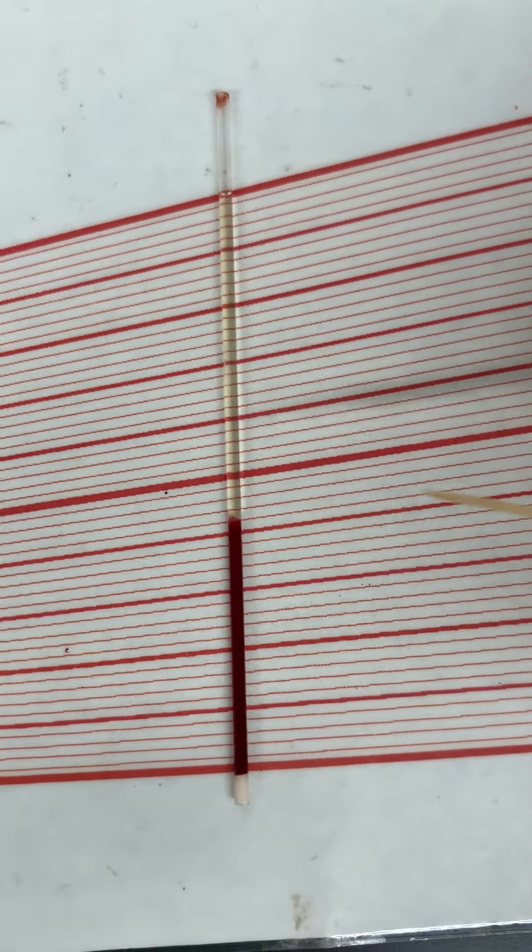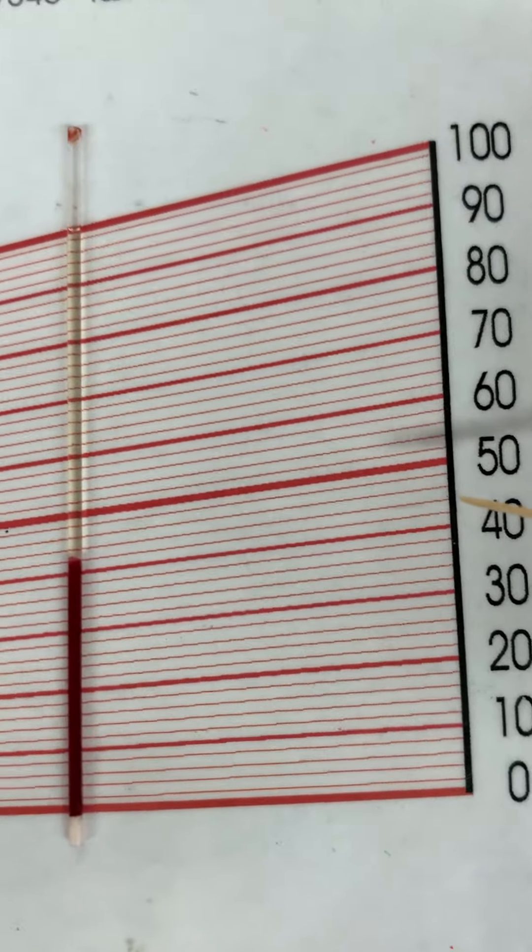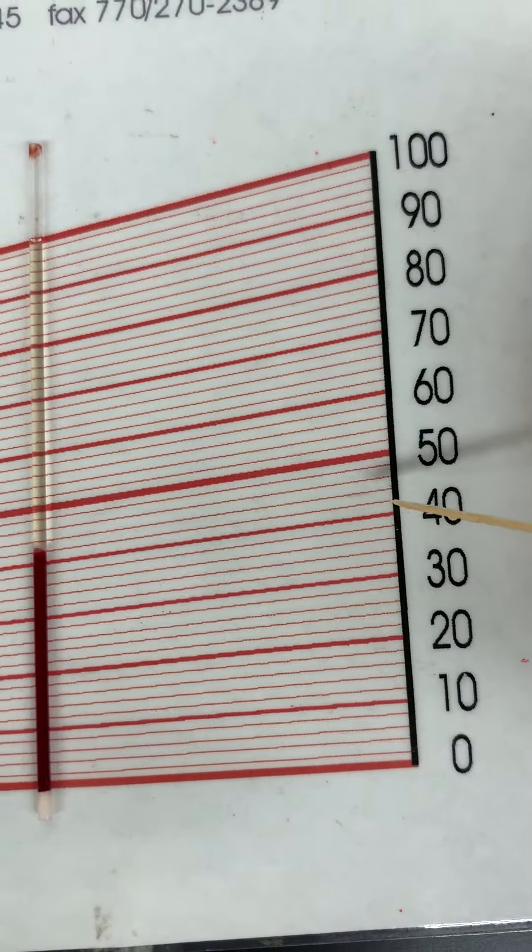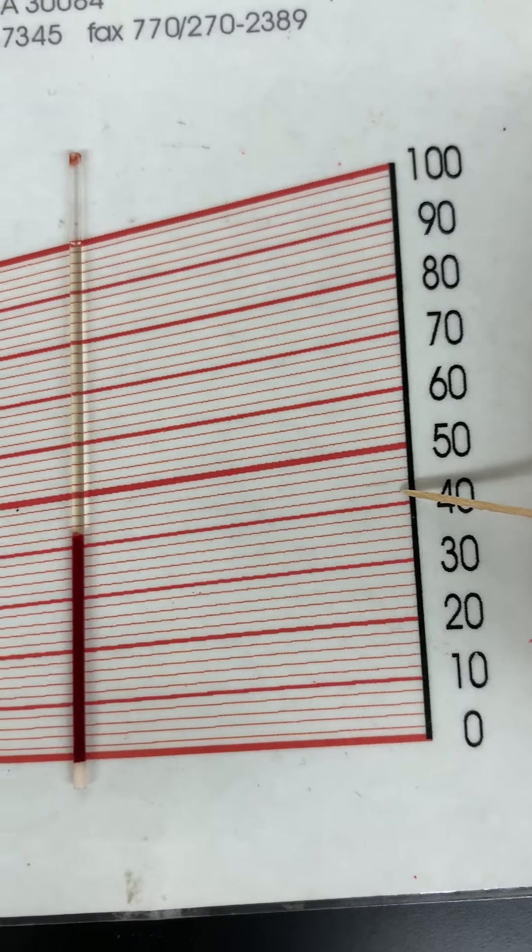So I'm gonna follow this line all the way over, and what number is that? So that number is right there. So take a look at your number scale. Write down that number.